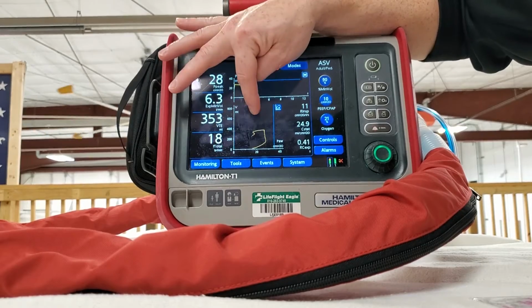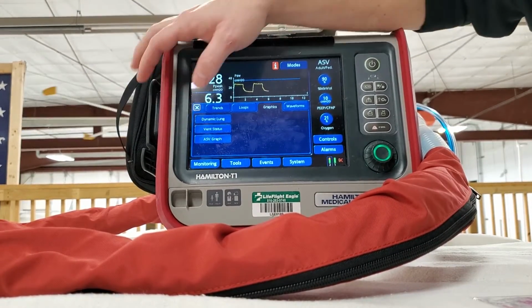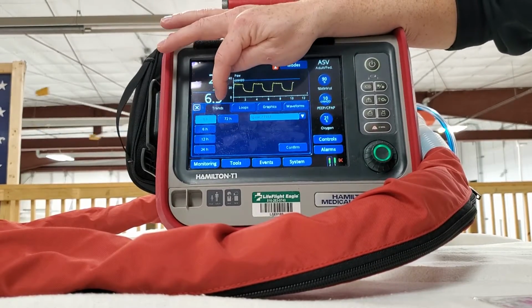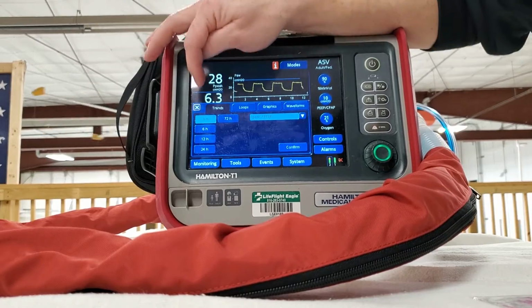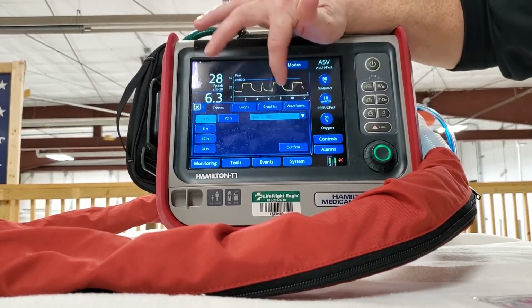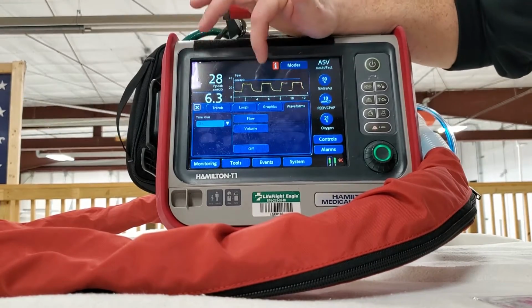I don't know too many people that use loops, but if that's your jam, go for it. Then the graphics, and we talked about waveforms, which is where we started. So, I don't know, you can use everything. These are so many tools for you to use, so you find out what works for you. But as a general rule, people are either going to use graphics or they're going to use the waveform.